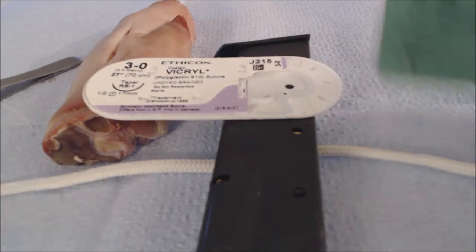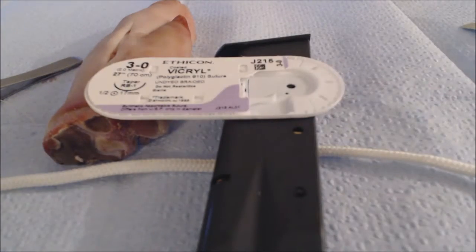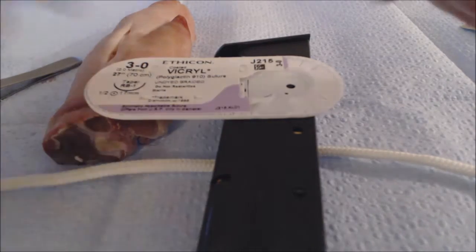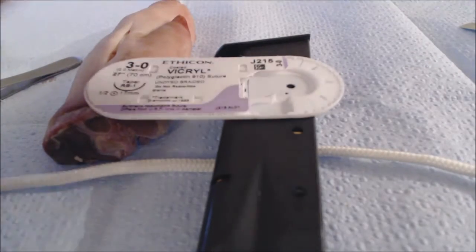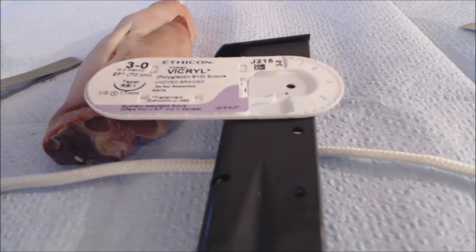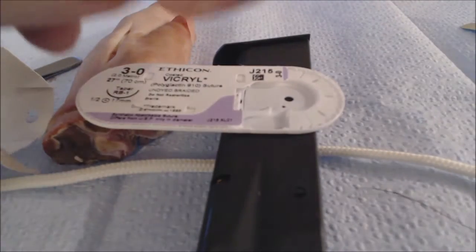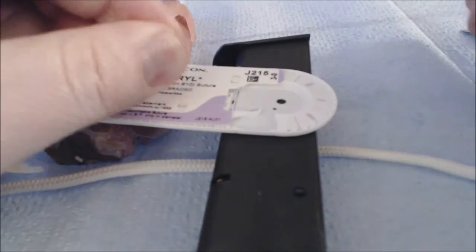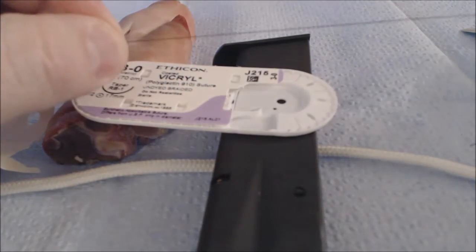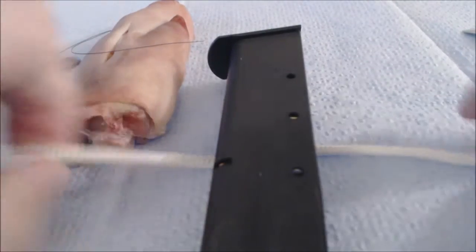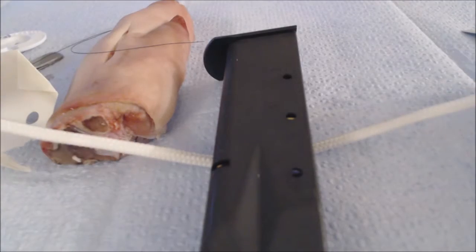But what if you're using a monofilament, like nylon? Well, these are very slippery sutures. And because of that, your knot tying has to change a little bit. That is to say, on your first throw, you're going to have to find a way to really cinch it down tightly so that it doesn't slip and you don't end up with something called an air knot. You'll know you have a monofilament when you run your fingers across it and it feels completely smooth like fishing line does. In instances like that, you'll want to change your technique slightly in order to secure your knot down tighter.